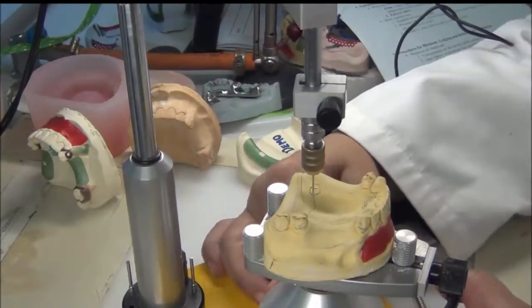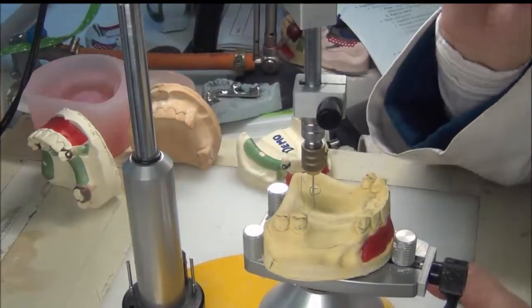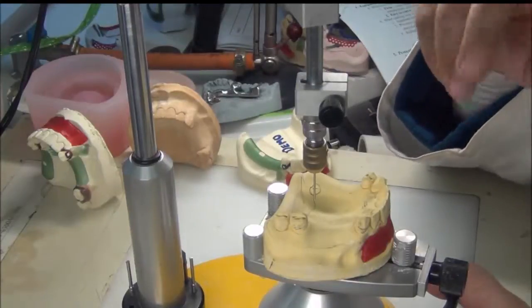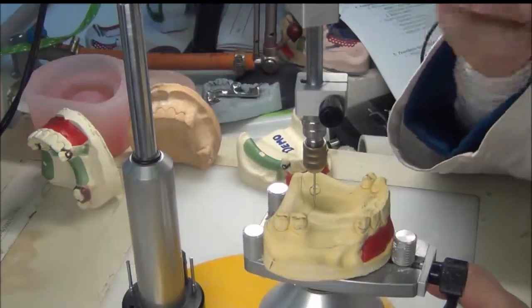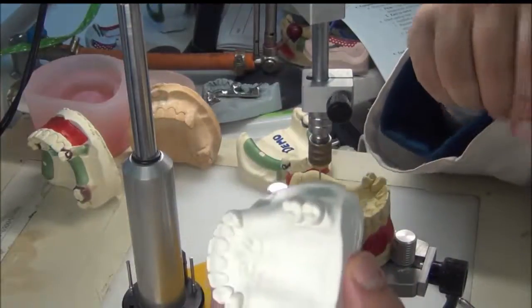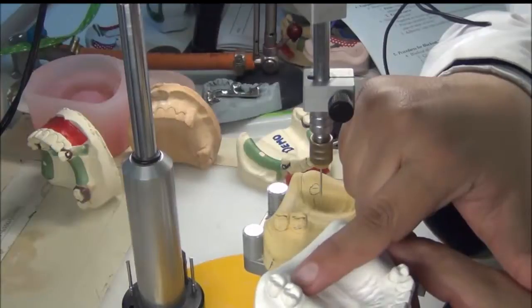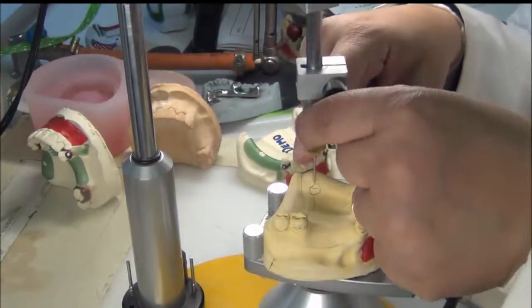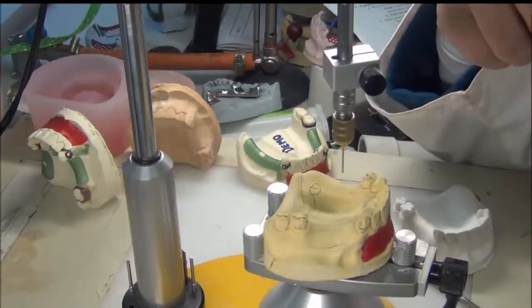Surveying and deciding the path of insertion is the responsibility of the dentist, not the technician. This initial surveying is done after clinic number one once the lab pours the study cast. The secondary cast is a different cast from the primary plaster cast, so we transfer the tripod points from the primary cast to ensure the secondary cast is oriented the same way. Using the analyzing rod touching all three tripod points confirms correct orientation.